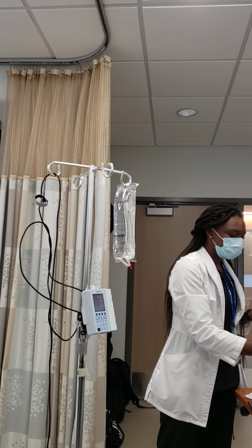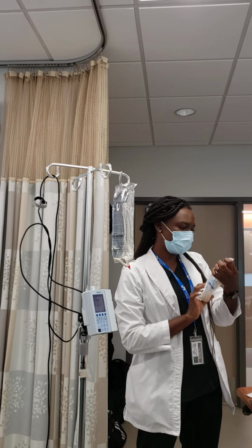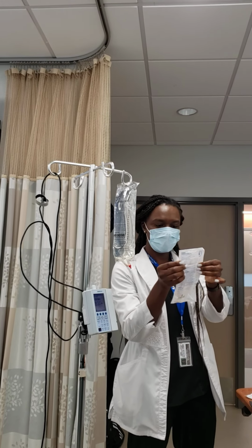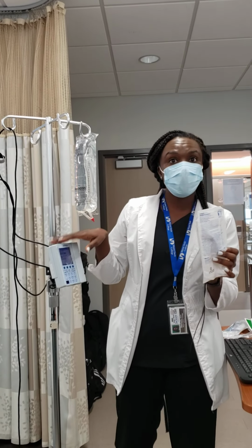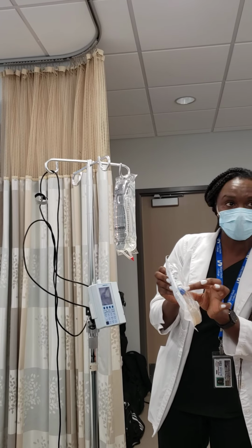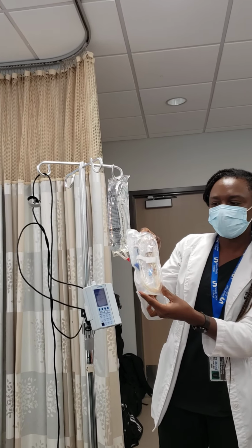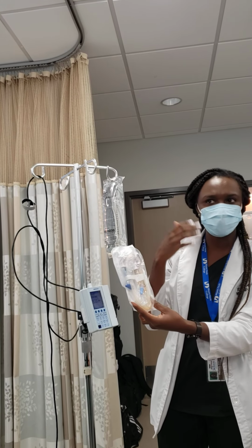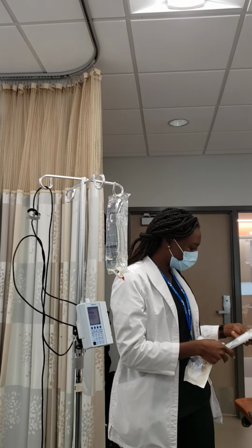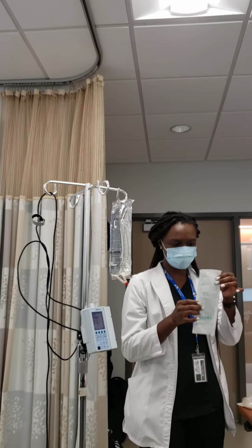Okay. Also, you have a primary tubing. It normally tells you on here what kind of tubing it is. So continuous flow solution set. For this specific pump, every pump has a different type of tubing. As you can see, this thing here, and I'll show you how it works within. It goes into this tab here. But the primary line is always longer than the secondary. That's how you know the difference between the two. As you can see here, I'll show you the secondary. So you also need a secondary line for the secondary bag.